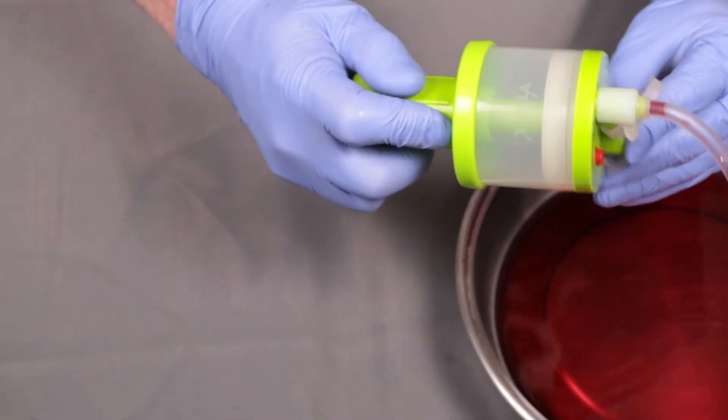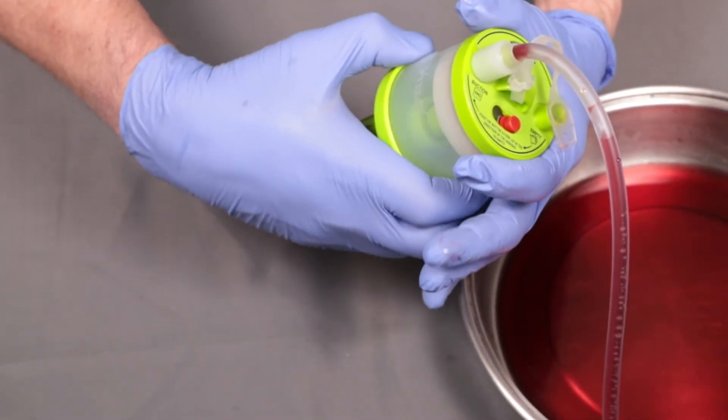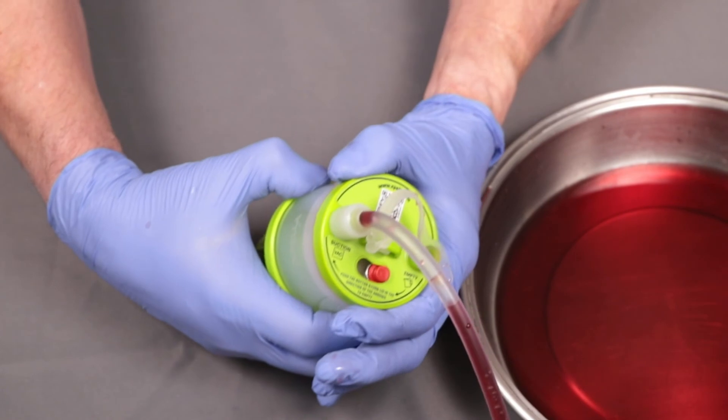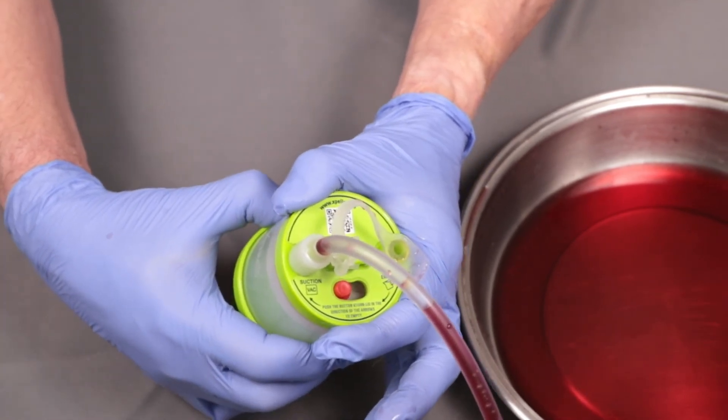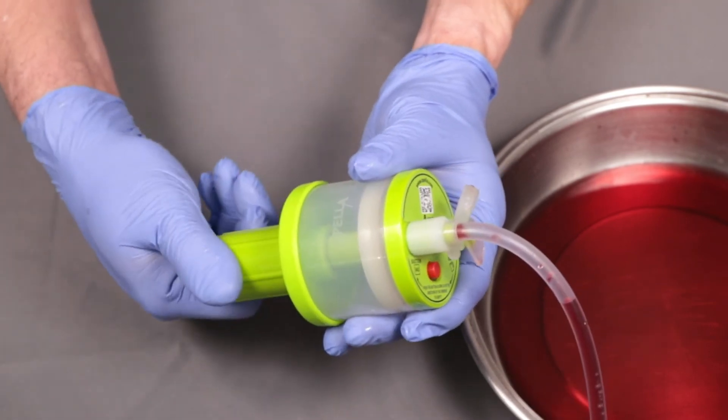Replace the plug. Turn the lid so that the button moves back to the vac position. You will hear a loud click. Screw the handle away from the reservoir.